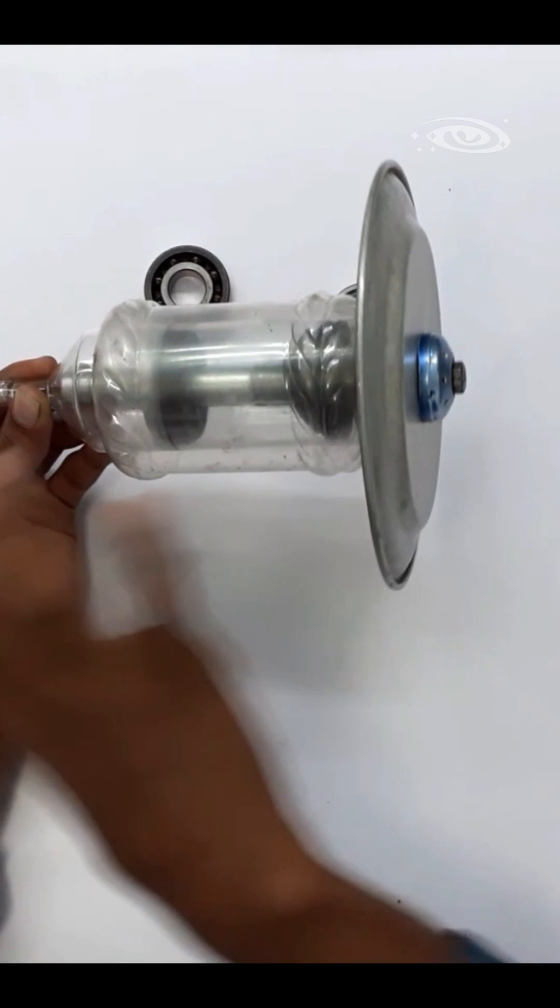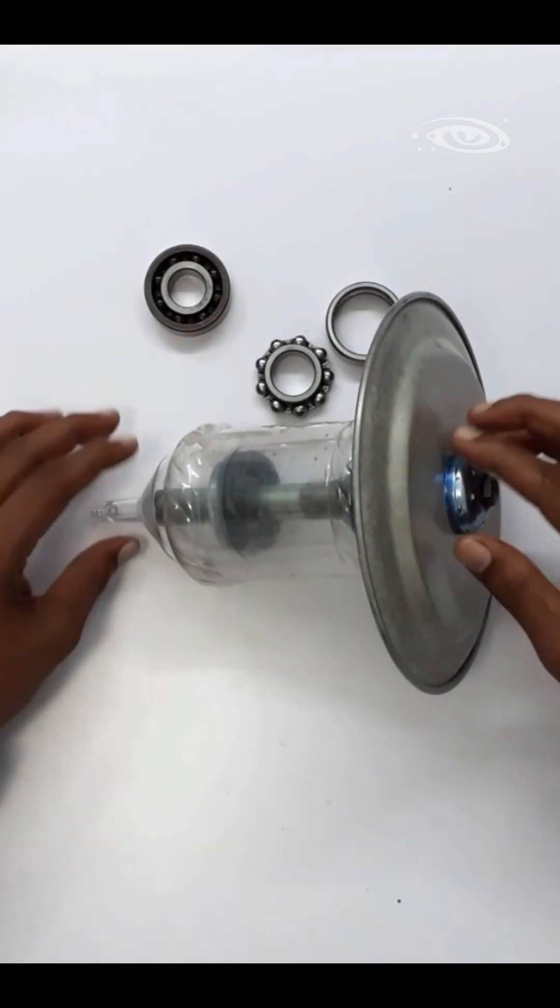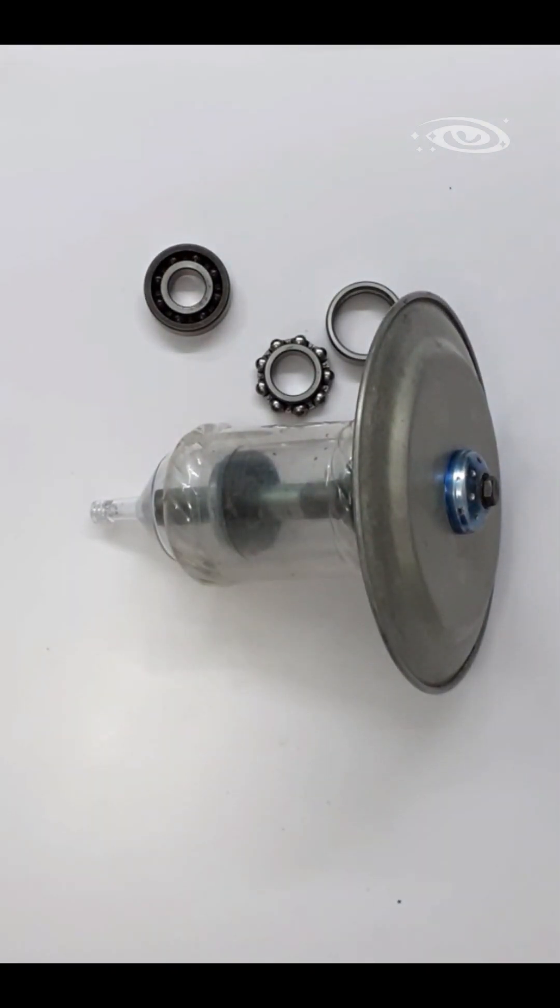intention of this model is to show the mechanism of this rotating anode. This is about the rotating anode x-ray tube.